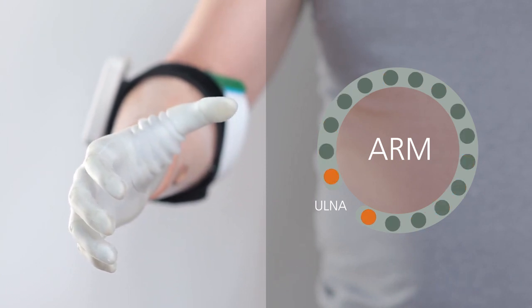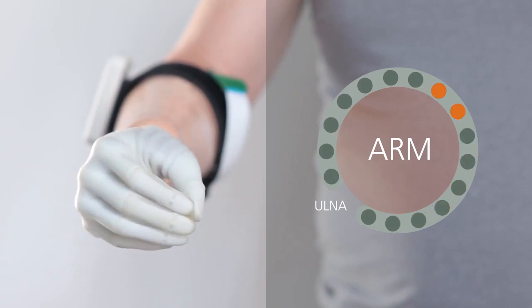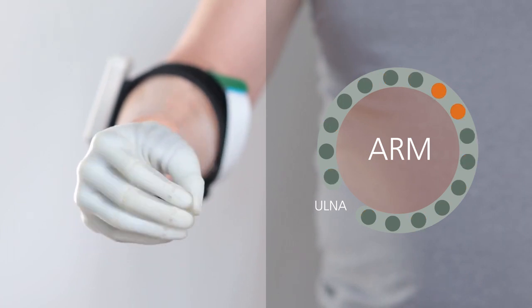When the hand is closed, the pads gradually come together. The speed of this location change is dictated by the hand's opening or closing velocity.